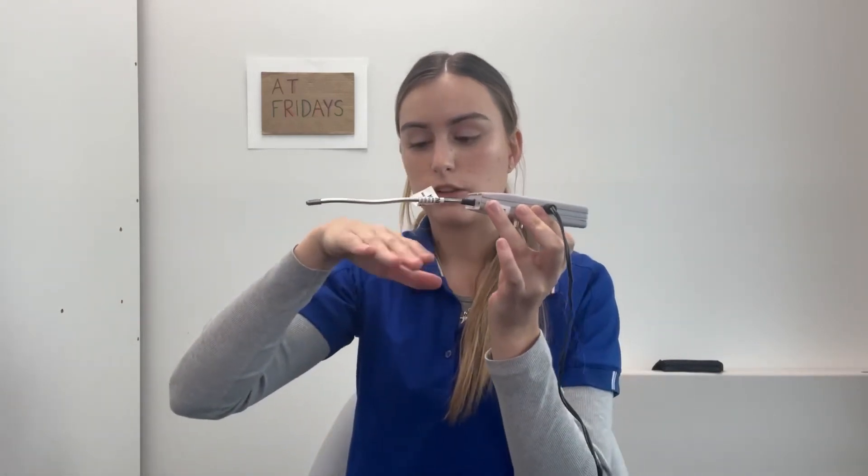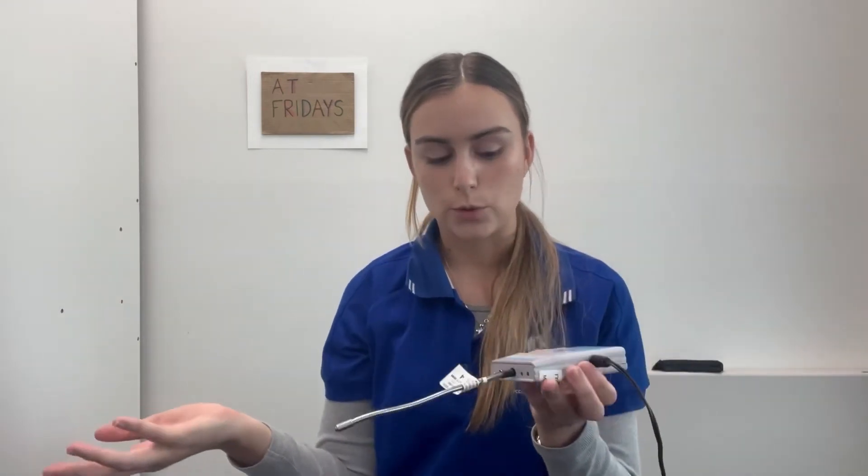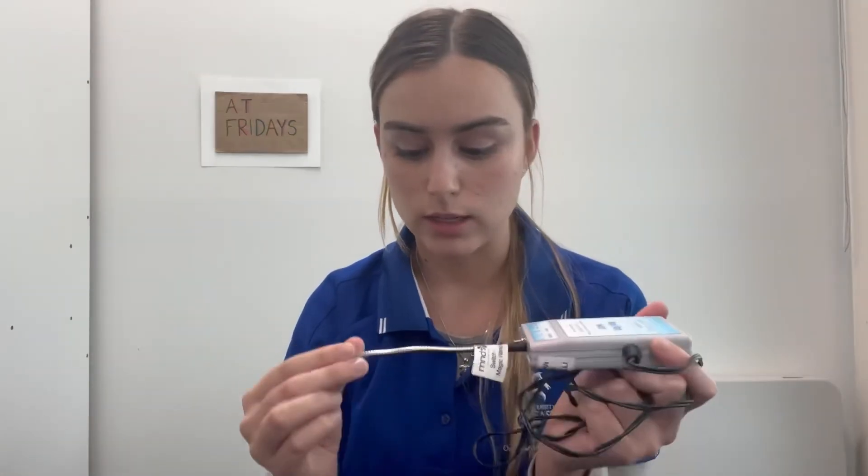For example, if I move my pinky, the door chime will go off. The wand can detect a movement as small as two millimetres. This makes the switch useful for somebody who has very weak or limited movements.